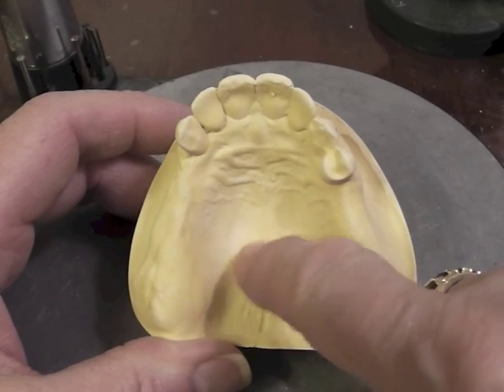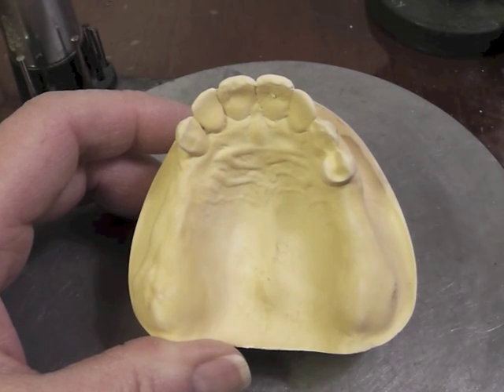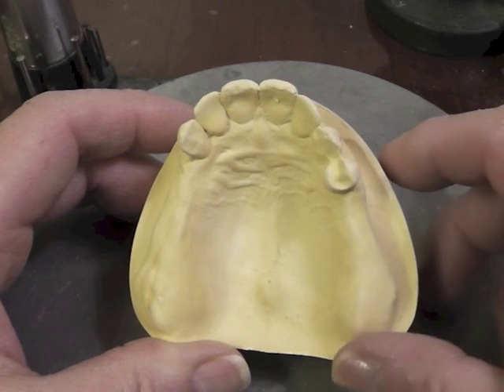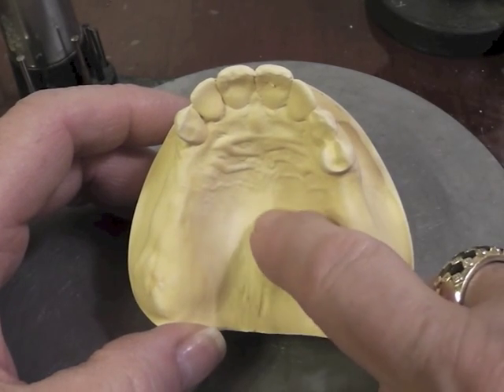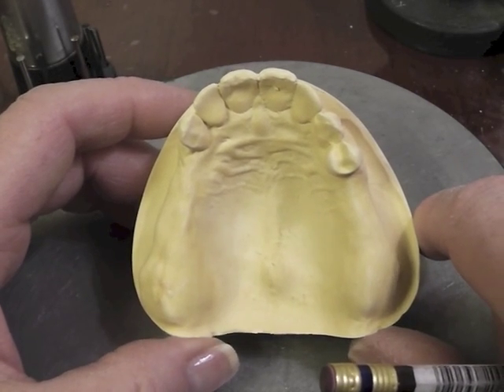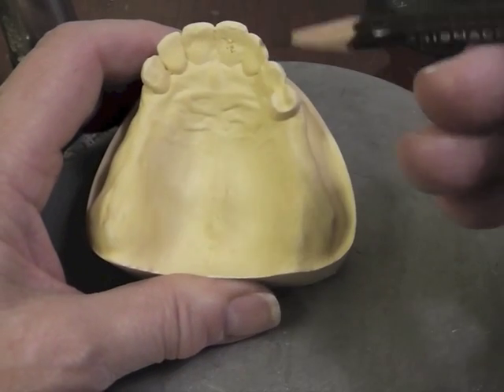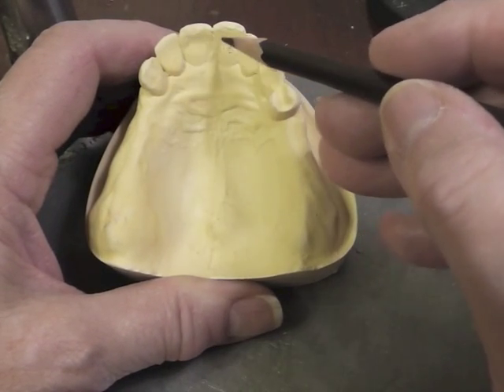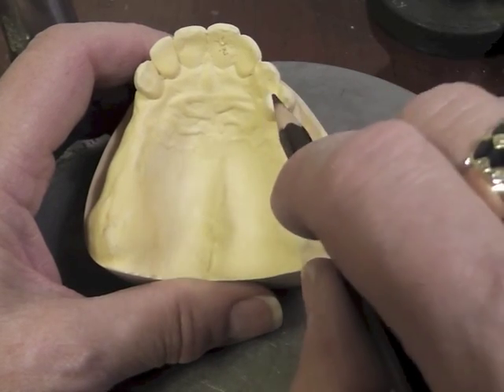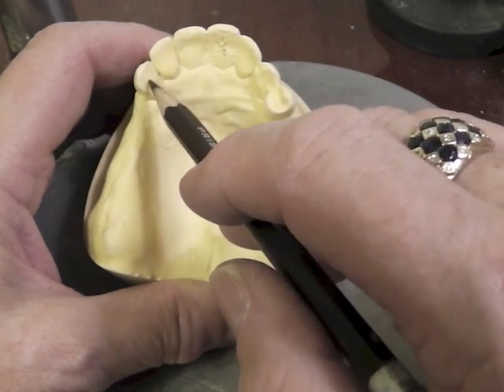We also have a palatal torus right here, back here. It's not extremely prominent but the skin over that torus is very thin, so we're probably going to be doing a major connector that will avoid that maxillary torus and that strong median palatal suture. We're more apt to do something called a horseshoe-shaped major connector, or a U-shaped major connector depending on your textbook. As far as a major connector is concerned, we would be plating all these anterior teeth, and we're going to put a cingulum rest on the canine and plate that tooth.